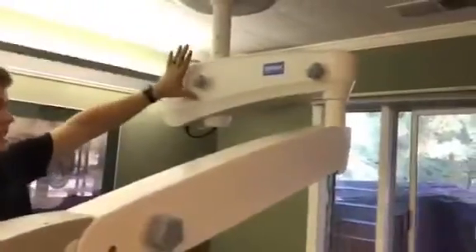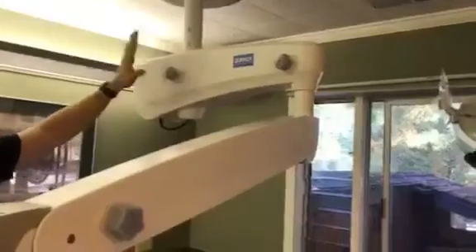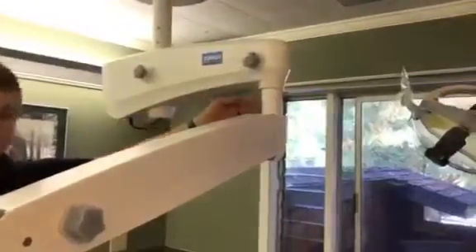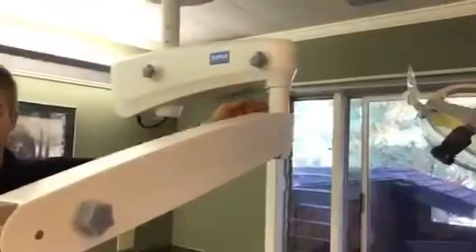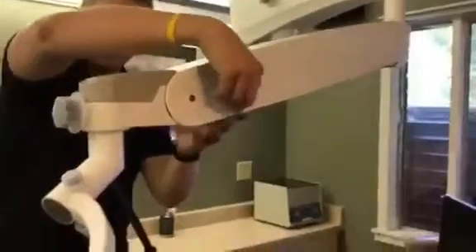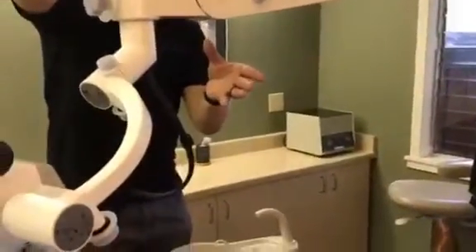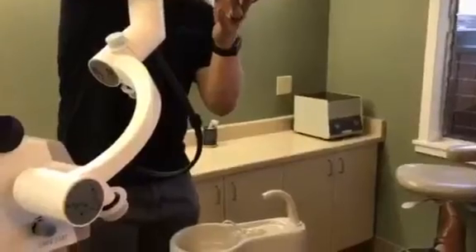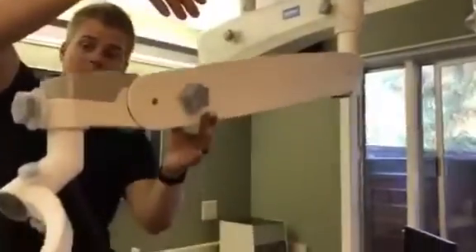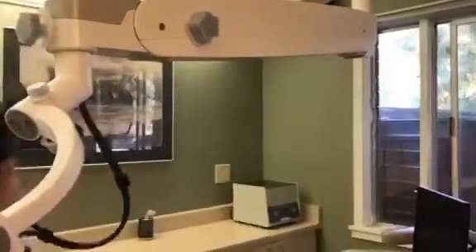The first knob is the tension knob for the main post, or your first arm. The second knob is for the tension of the second post, or this pivot. This knob right here — if I loosen it, it's very easy to float up and down. You can tighten it up just a hair; this is one where you don't need to adjust it much, and it should stay.